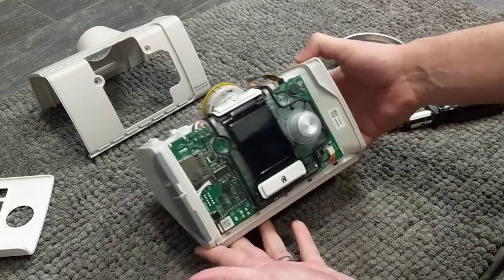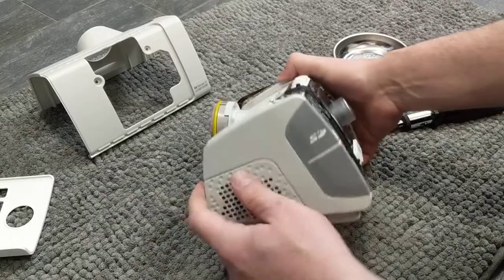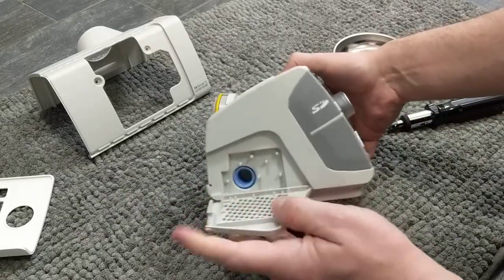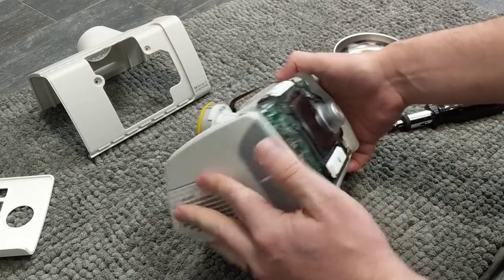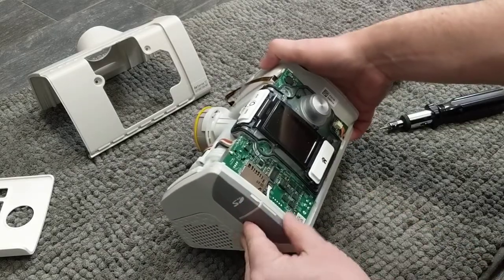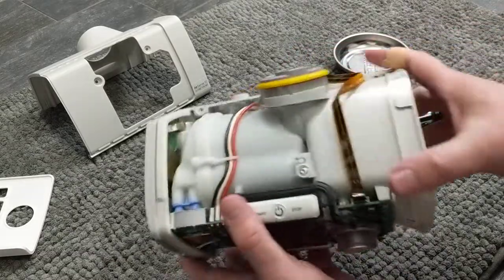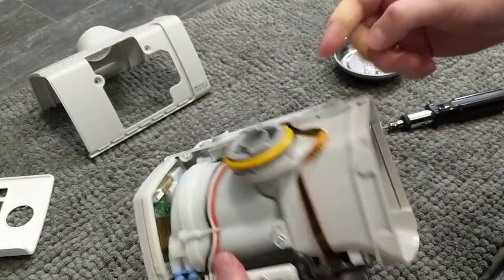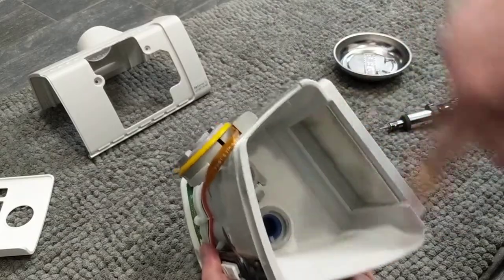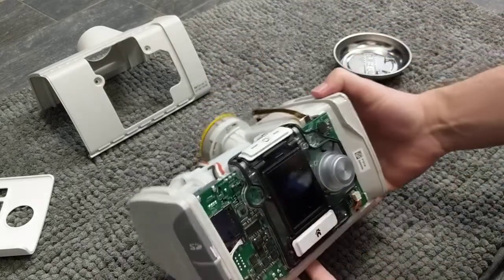So this is what it looks like on the inside. Just to remind you how these machines work: this is where the air intake is, the filter goes right here, this is the SD card slot, and here's the little port for the oximeter. The air gets sucked in here, goes through this little chamber, does its thing, comes out here, goes to the humidifier, then out to you.